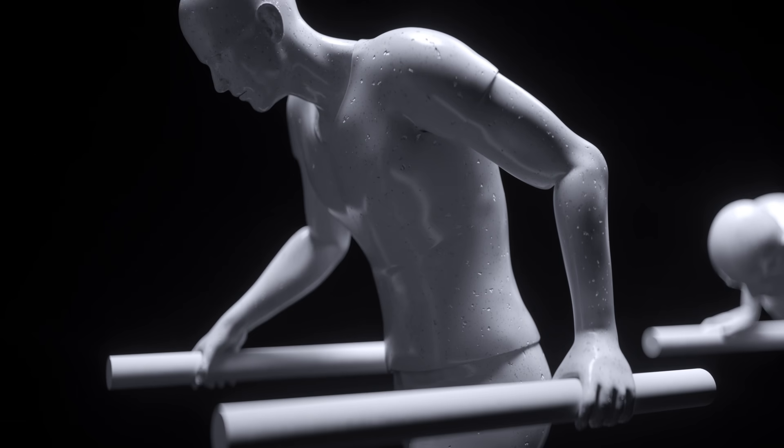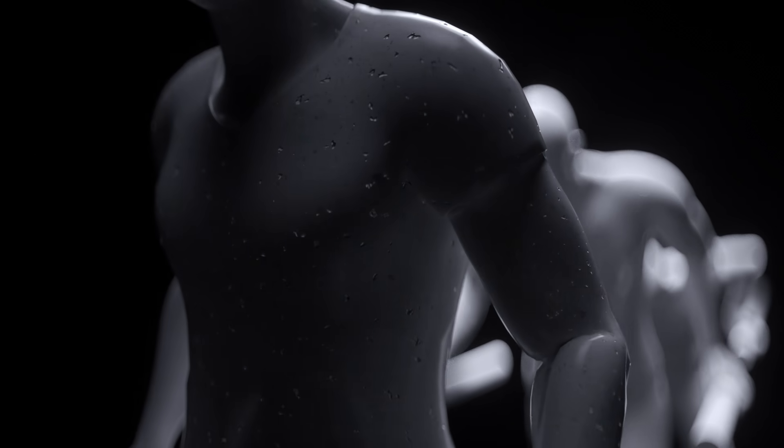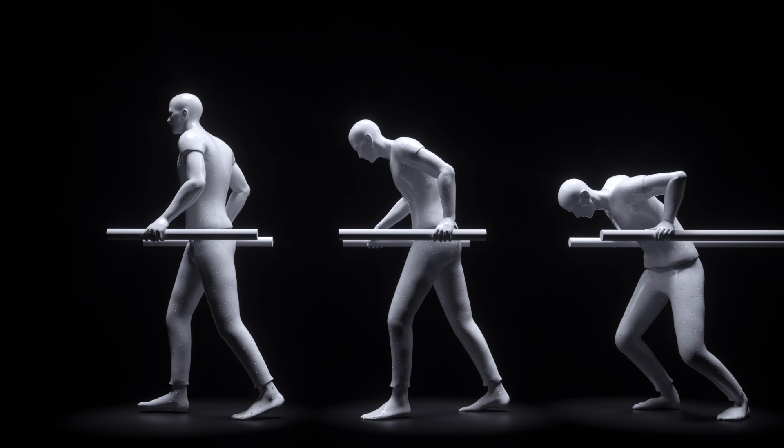It has always been a challenge to minimize the time to first ambulation for gait or balance-impaired patients to ensure fast and full recovery.